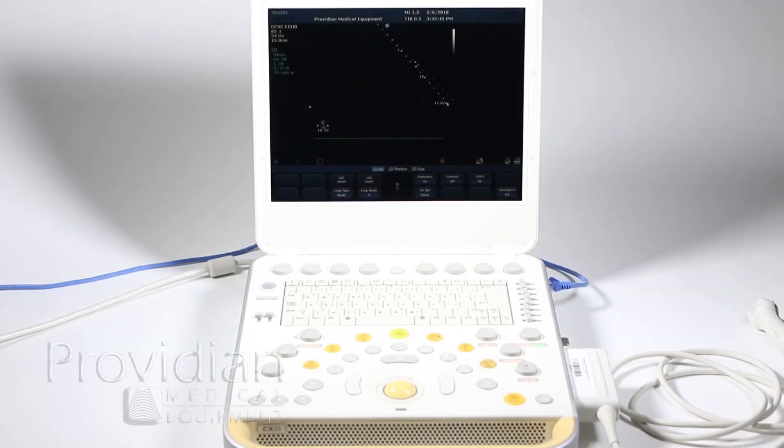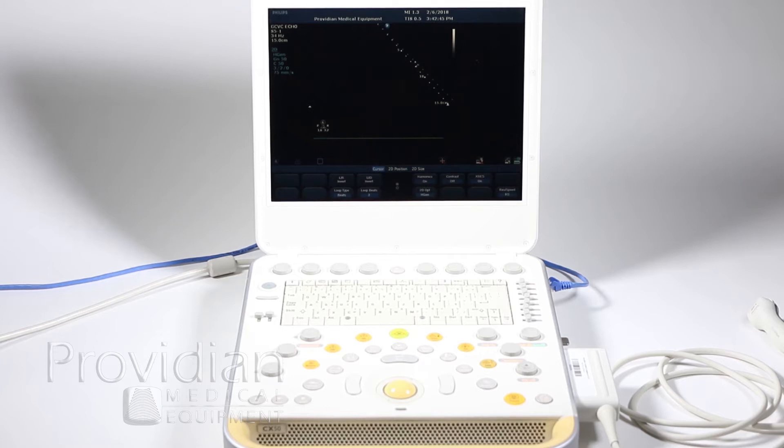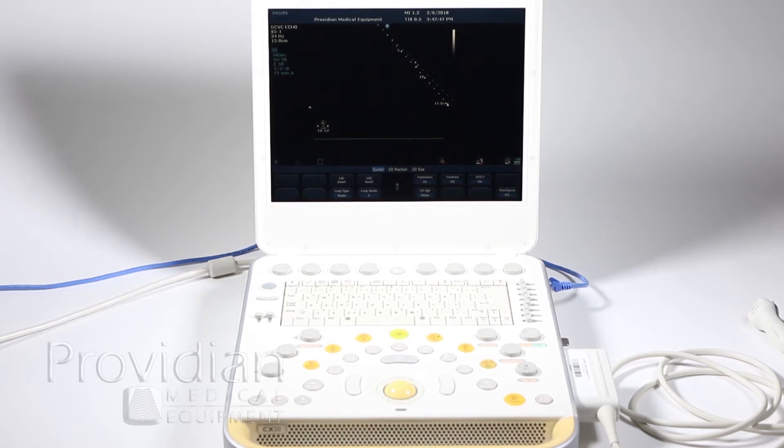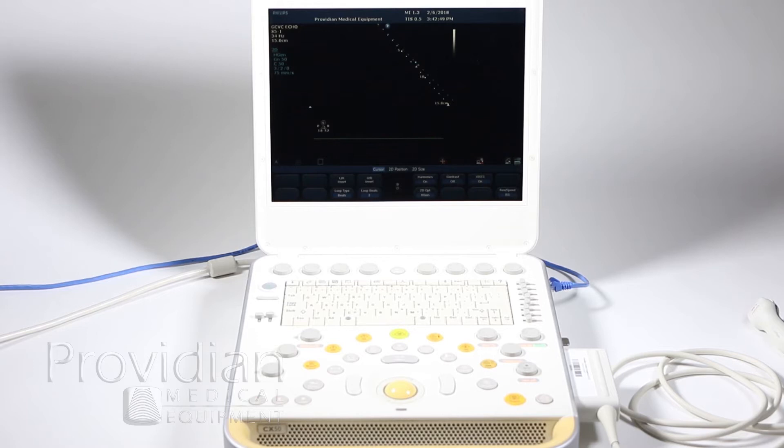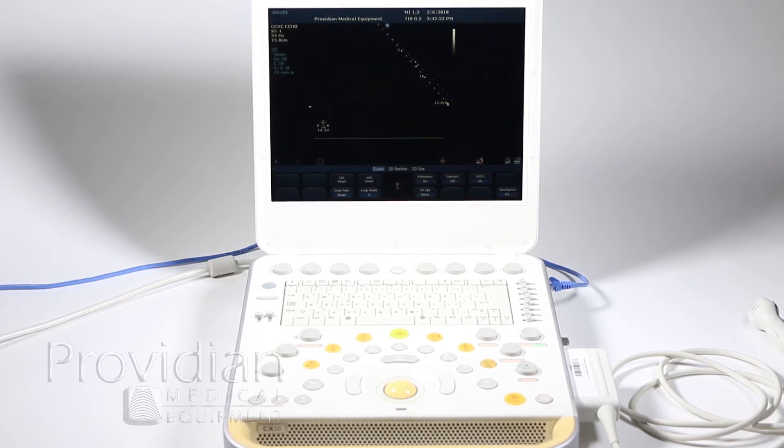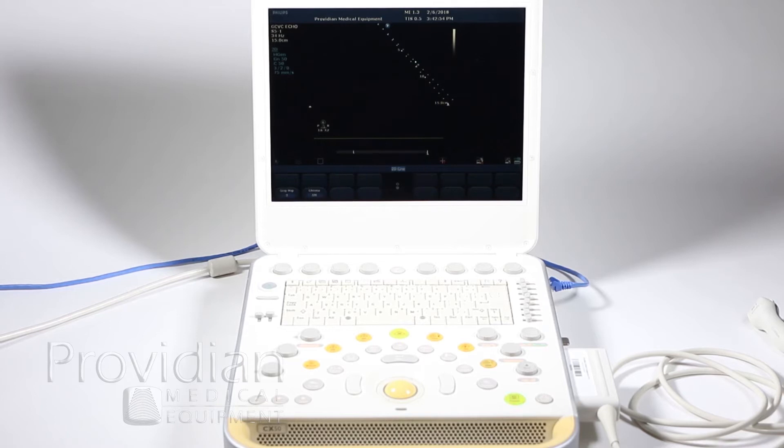DICOM setup is pretty much difficult on any system, even with an experienced IT professional and the PACS provider. So many things can go wrong between the system and the PACS that it really is a very complicated procedure.